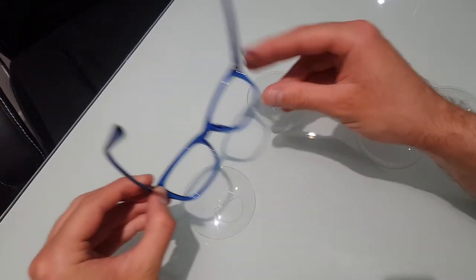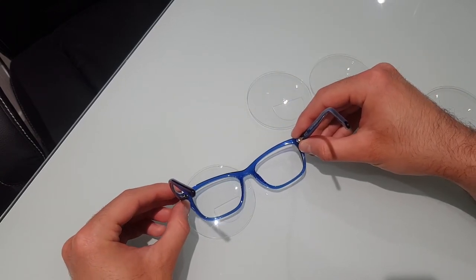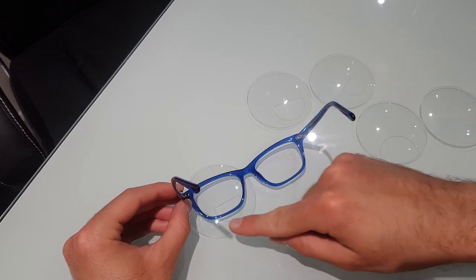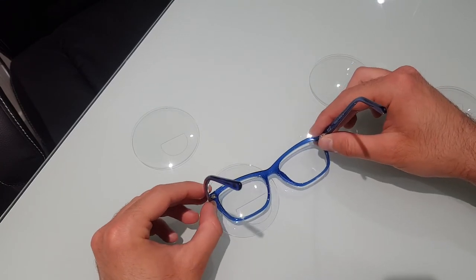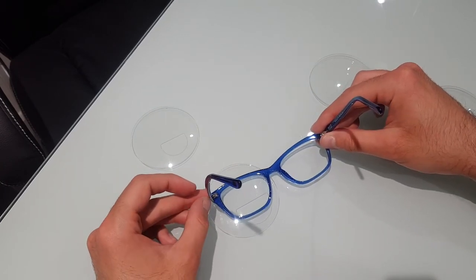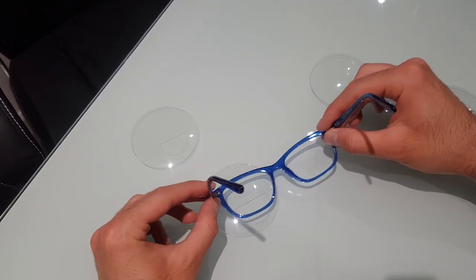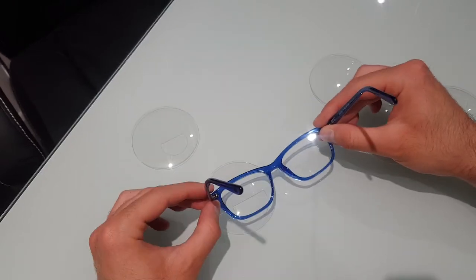For example, if you had your reading section maybe about there, you can see you've got the whole 28mm across the top that can fit into the lens. If you've got a D35, you could nearly cover the whole bottom of that lens, obviously depending upon where that needs to sit horizontally and vertically. This is just an idea.